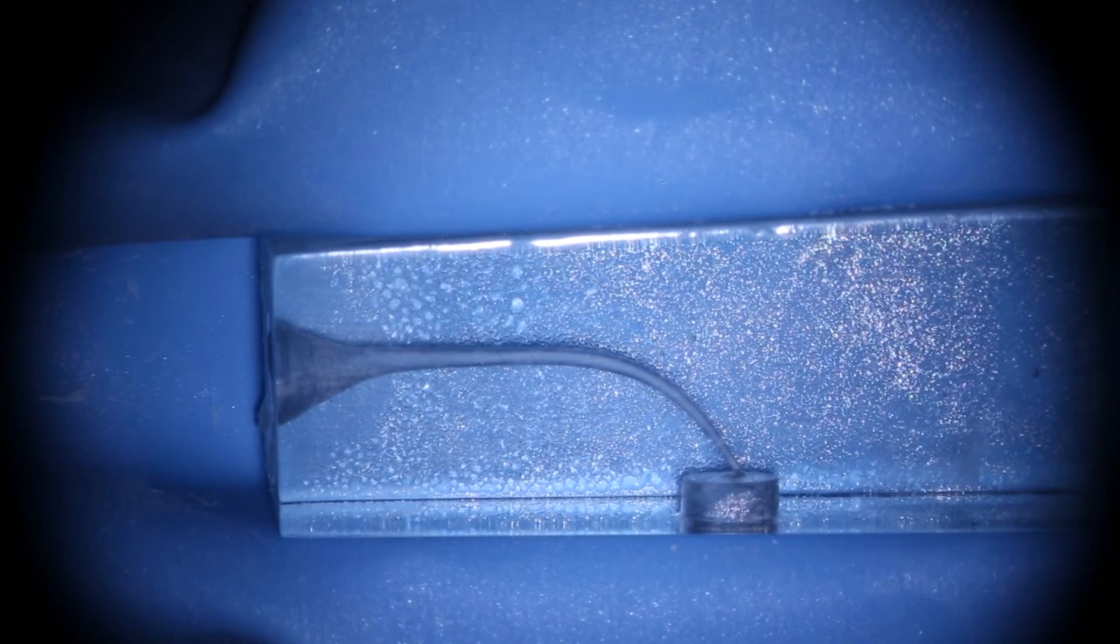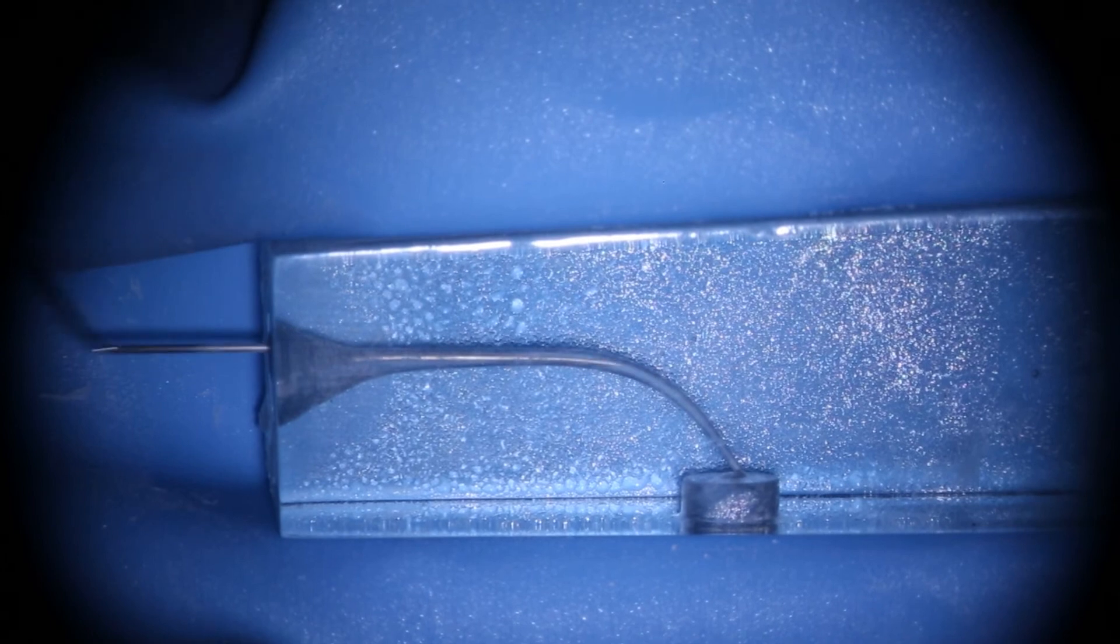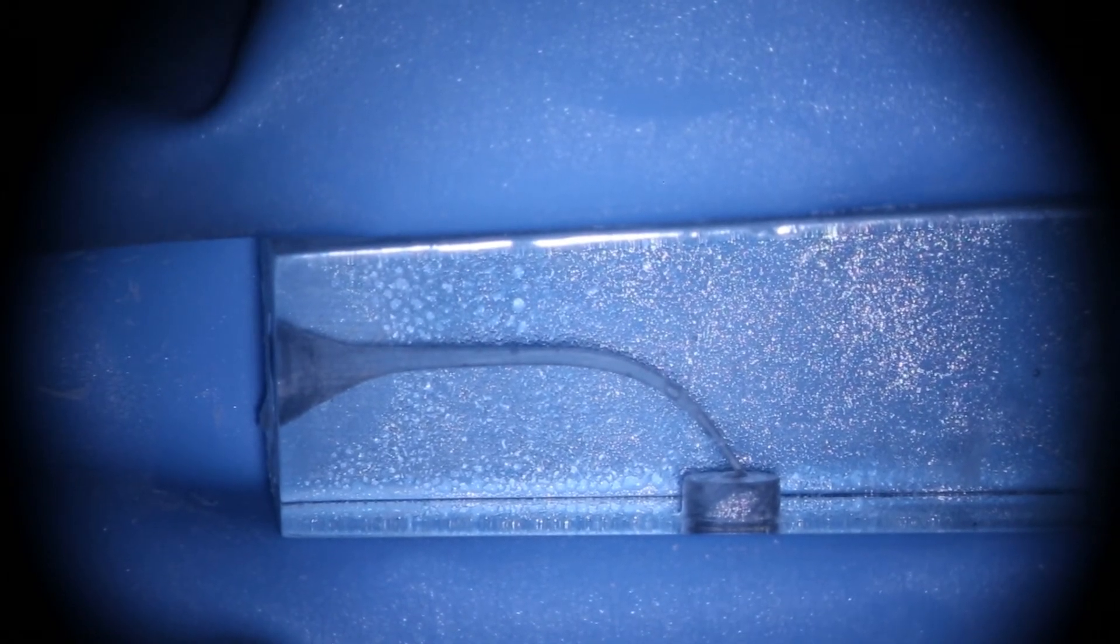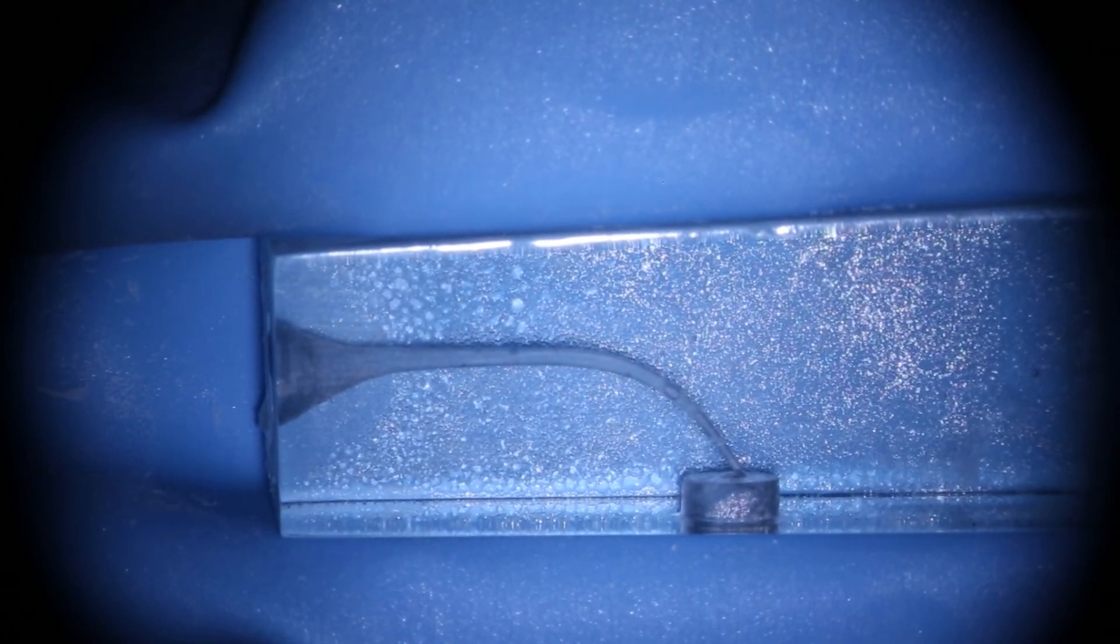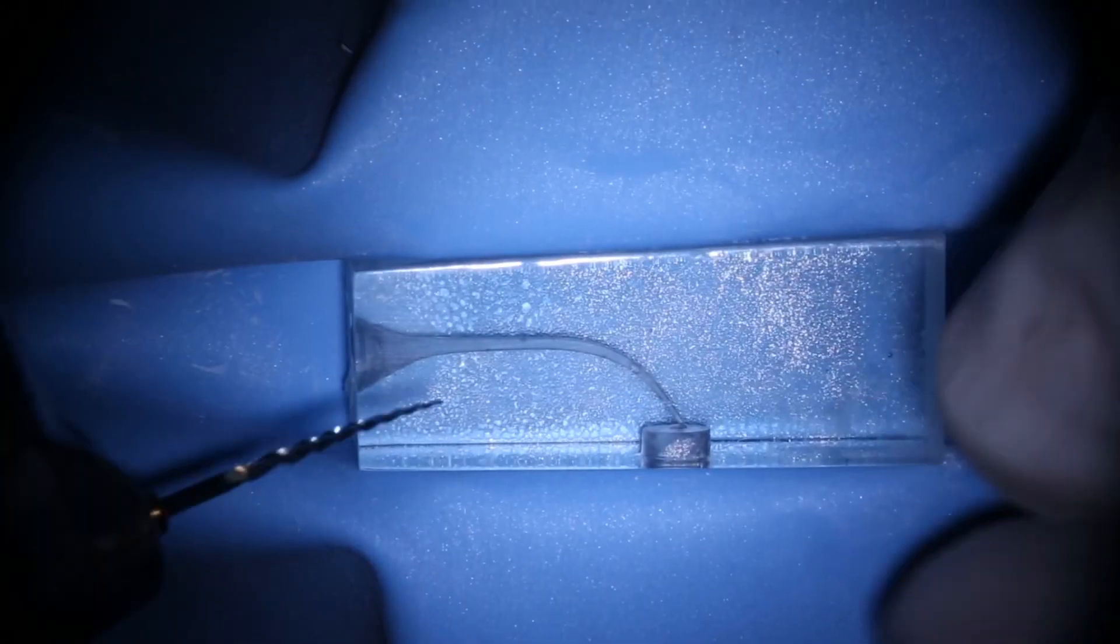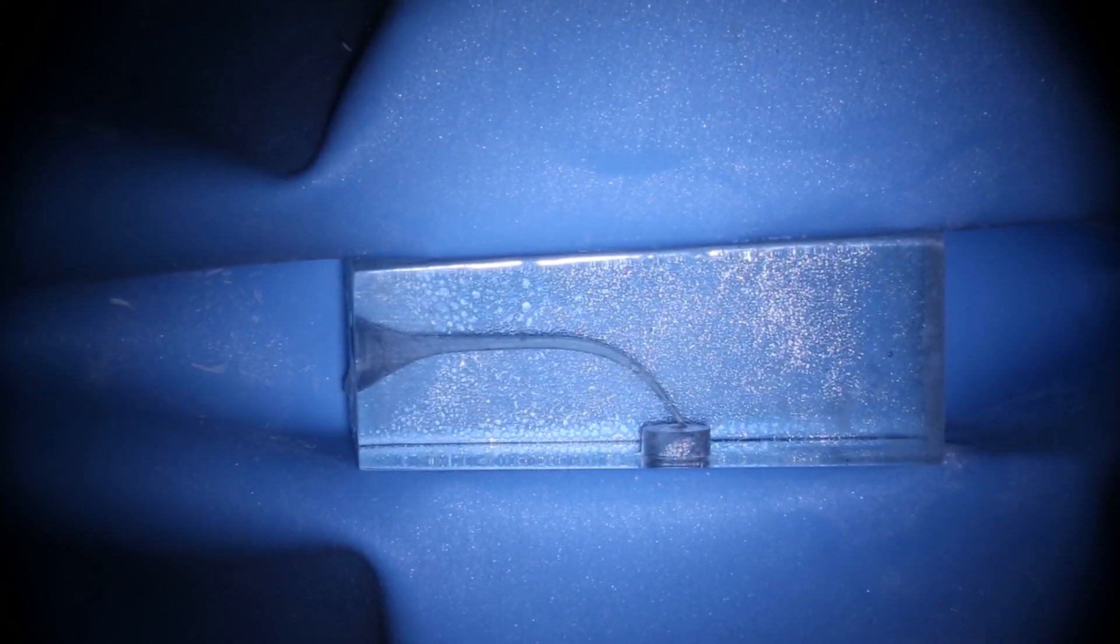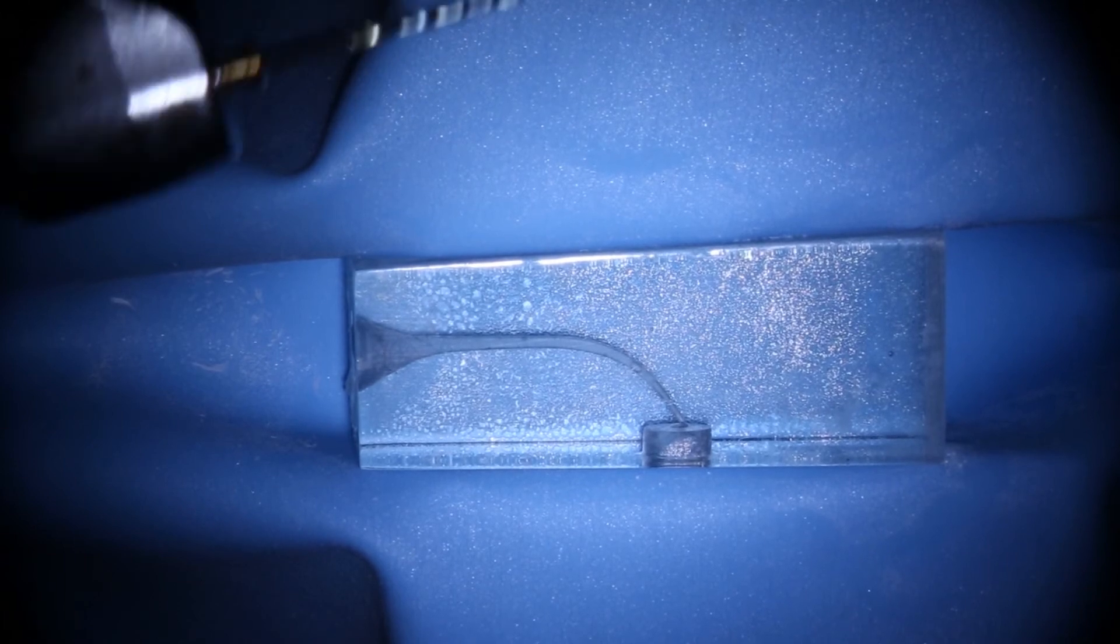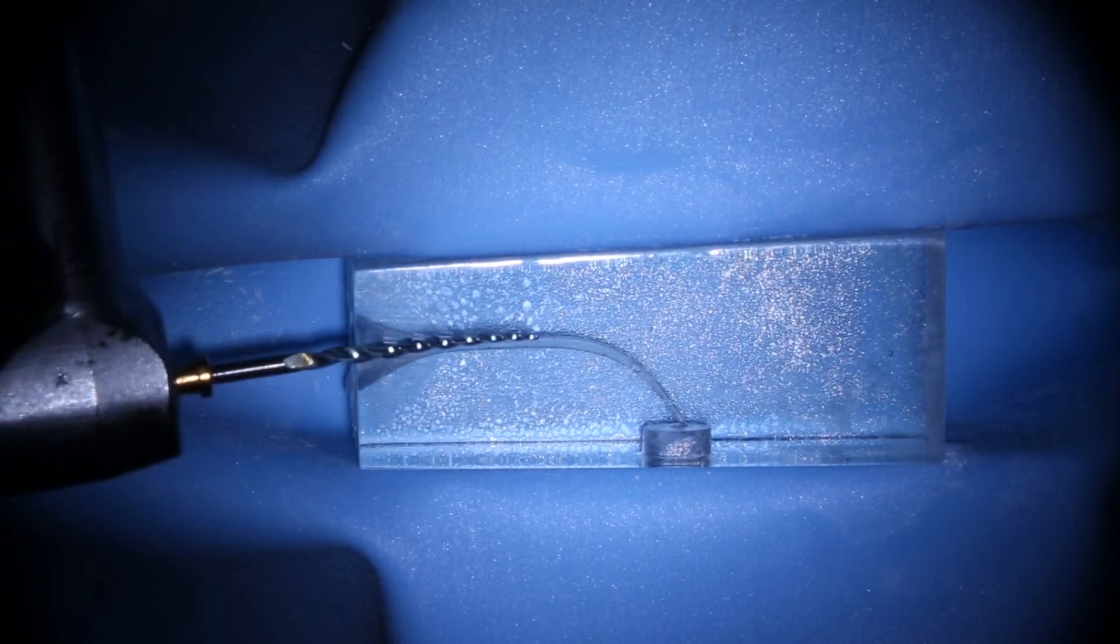So to fix that, we can make a small change to the way we go about our prep. Now, you may already do this, so it might not be any change. But if you're the type of person that doesn't often use an orifice shaper or some kind of flaring in the canal, and you simply use DC taper without an orifice shaper, then the shape of that canal may not allow a cone to seat, a 4% cone to seat. So instead, we may use an orifice shaper. Now the orifice shaper is obviously designed to change the shape of the orifice slightly, usually to allow a better path of access. Now we don't want to go and take huge amounts of tooth structure from that area because we don't need to.